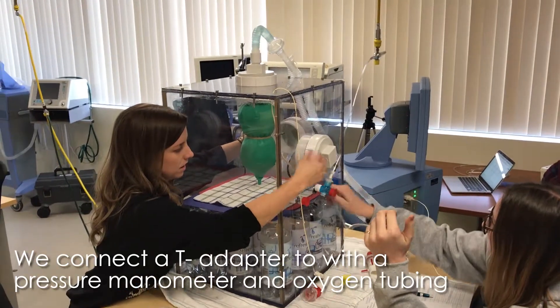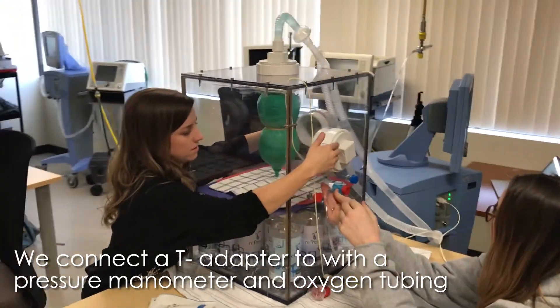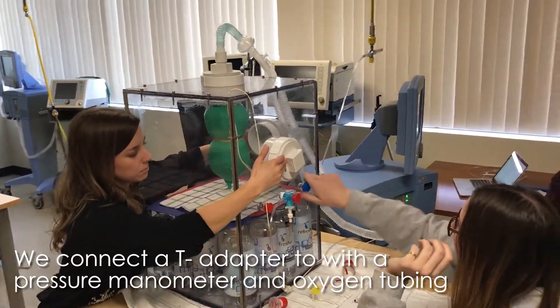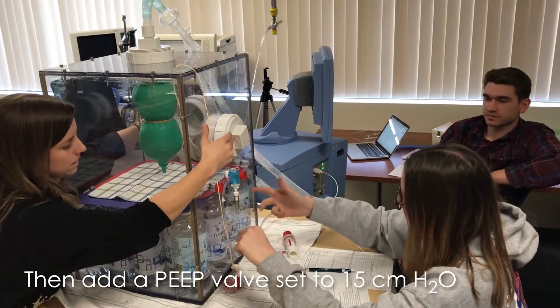White side in. And then drop that down. Yep, there you go. I love that. Now in blue, you're going to put the peep valve. You're just going to take the cap off. That is going to stay there.